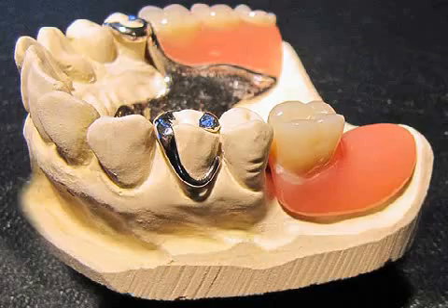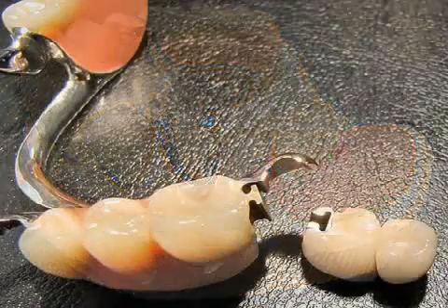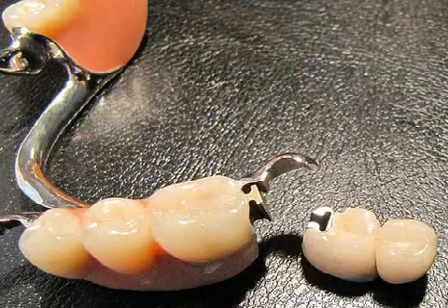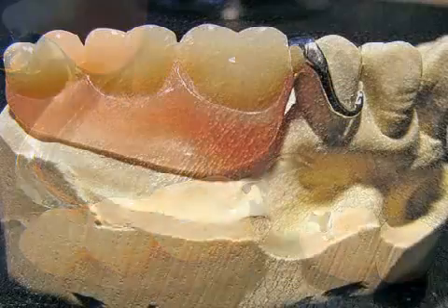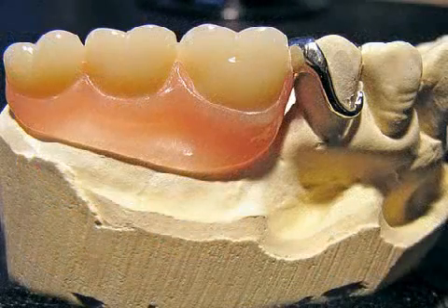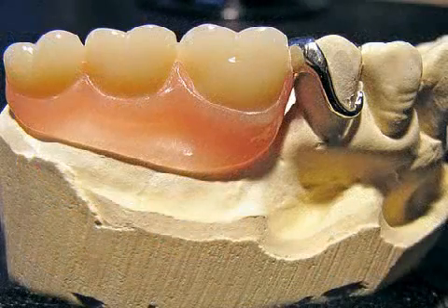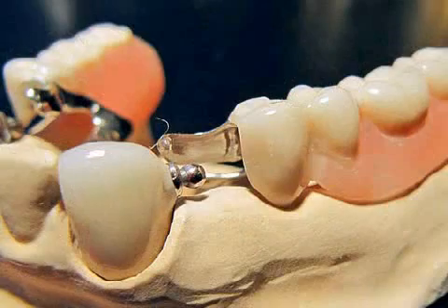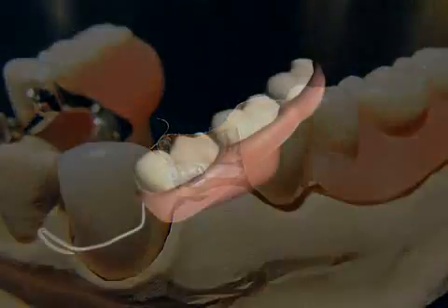A partial prosthesis is a removable denture. Unlike with a total prosthesis, some of the original teeth remain in place with a partial prosthesis. In the picture, you see a partial prosthesis in the upper jaw.